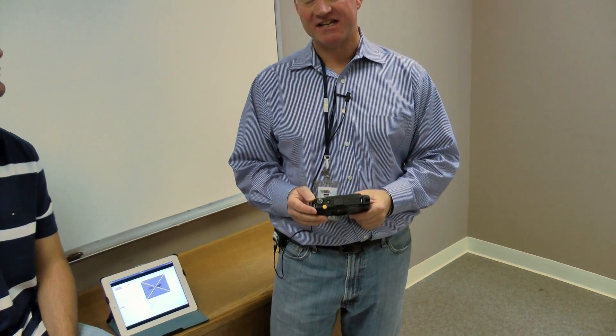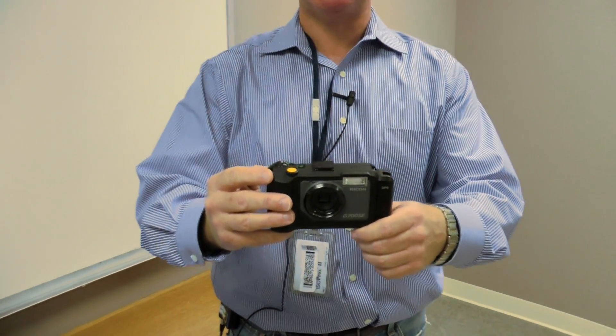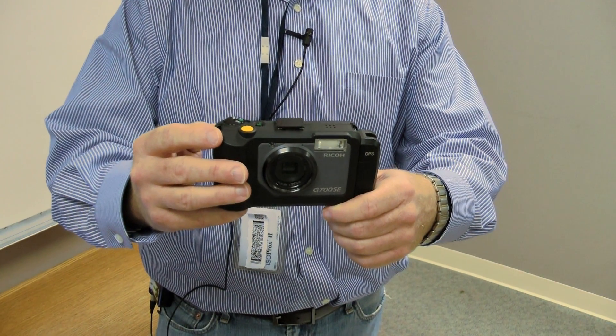David, can you tell us a little bit about this camera and what are you showing us today? I'm showing you the easiest, simplest, most accurate way to attach photo images to electronic medical records. Using that camera? Using the G700SE Dynamic Capture camera.